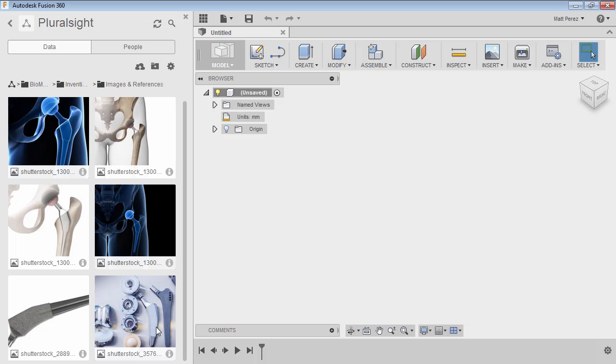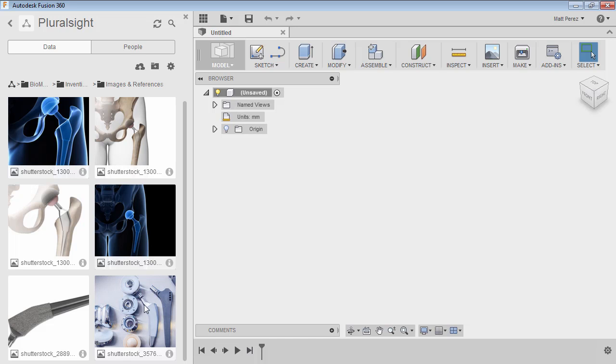This nice smooth curve shape, but the basis of all of these—the actual ball and socket joint and some of the basic mechanical geometry—stays fairly similar. So we want to work based on that assumption that we can make this single device fit this particular bone structure, but have some of the base features that we don't want to update. So we're going to start by taking a look at two of these images.